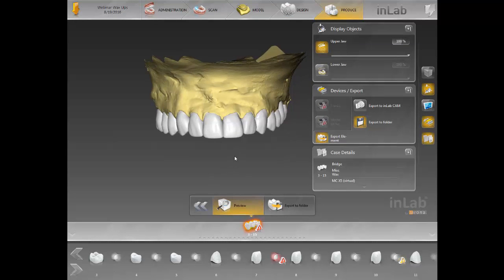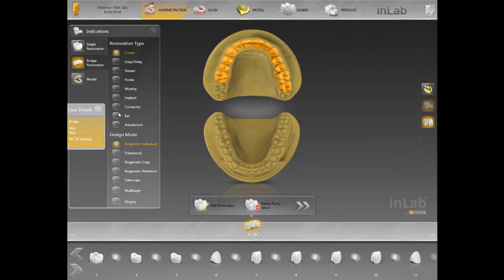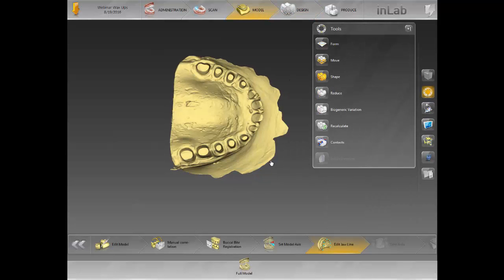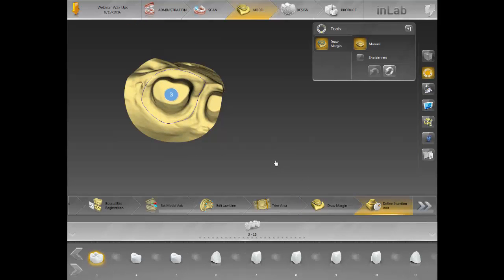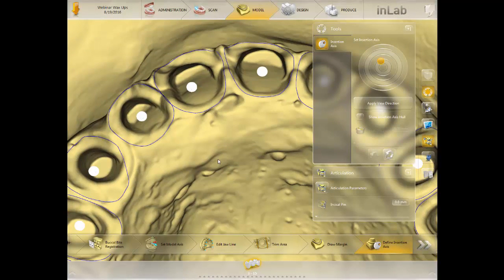The other option you definitely have is to virtually seat the case. If you go back to your administration and want to create a model and print out what you just designed, you click on the 'virtually seating' icon, click 'seat layer,' then click apply. What it's going to do is take everything you just designed and give you a virtually seated model. But as I was saying earlier, if you do not check to make sure your margins are clean, it will give you an error. So at this point, I'm just going to double-check all of them to make sure nothing is overlapping.